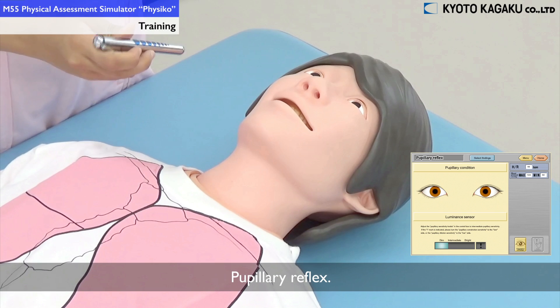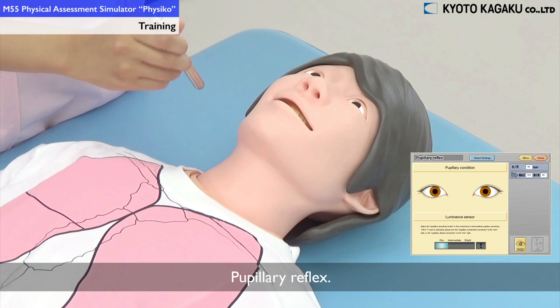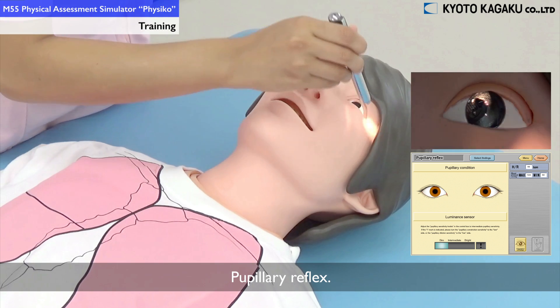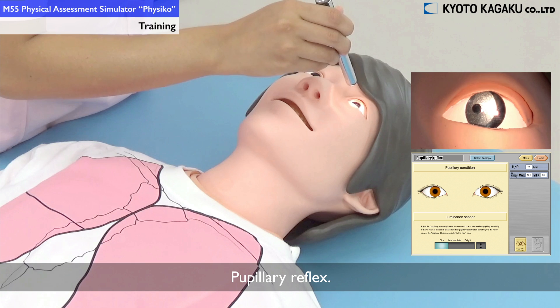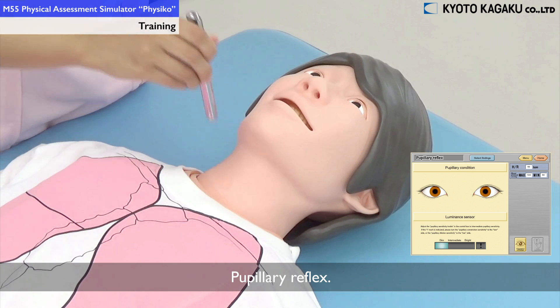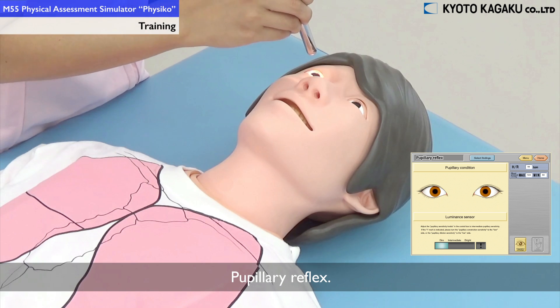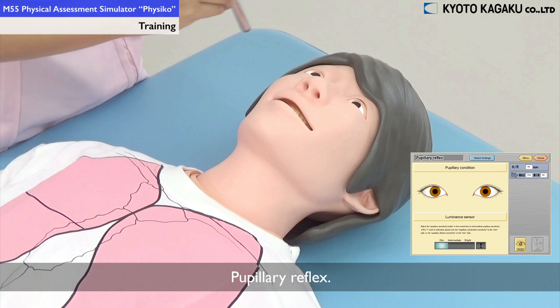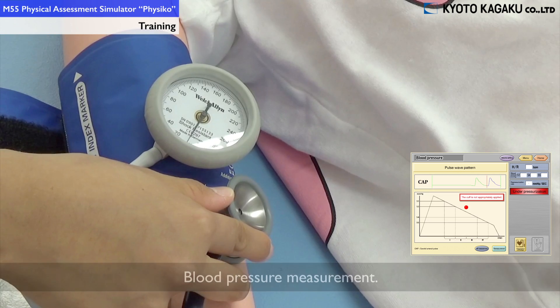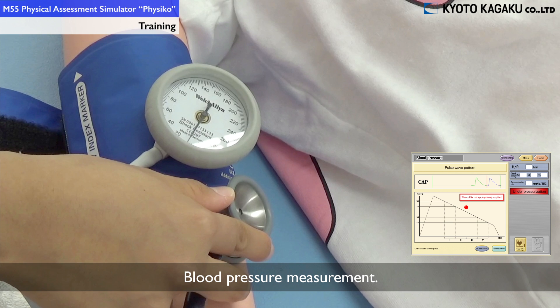The pupillary reflex test checks the pupil's reaction to light. You could also train to measure blood pressure.